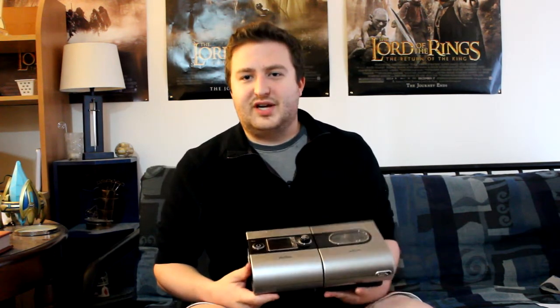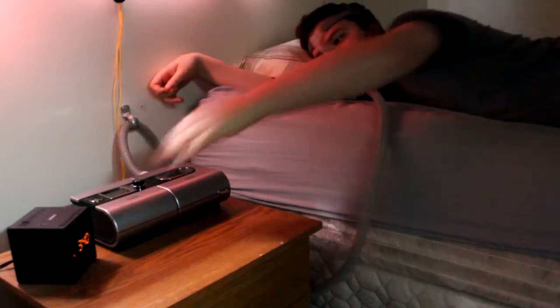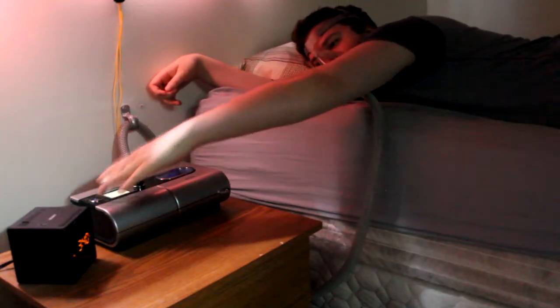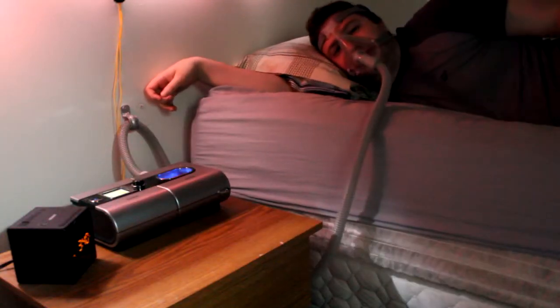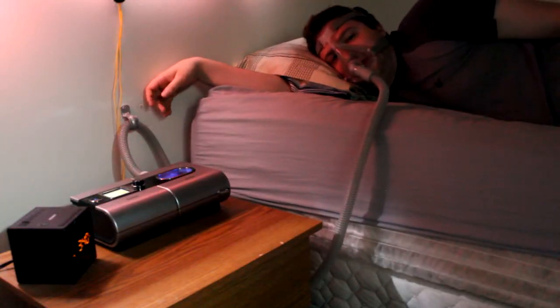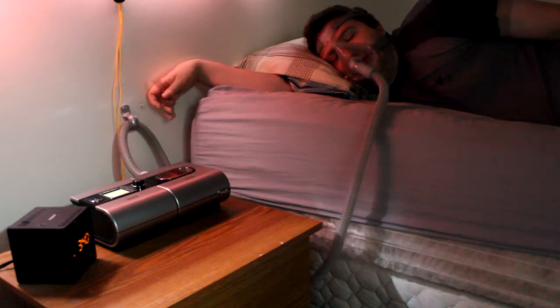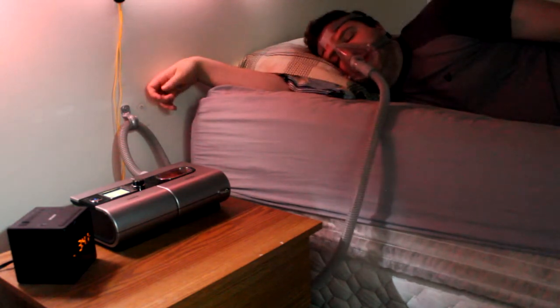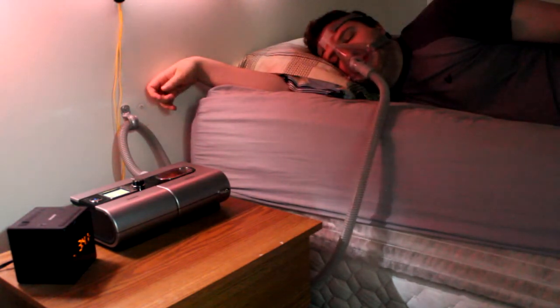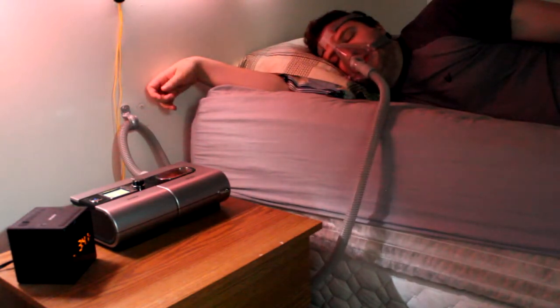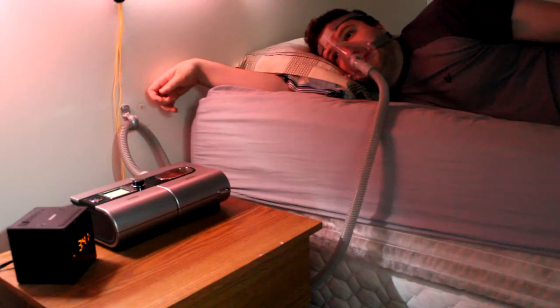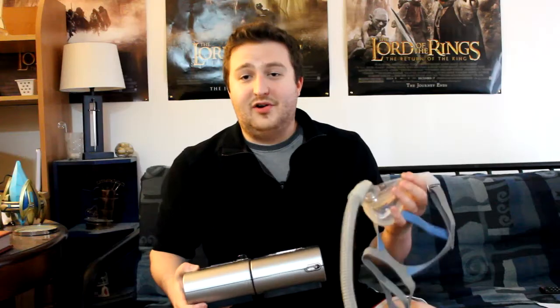Sometimes, however, in dry conditions, the water reservoir can run dry. Unfortunately, even though there's no water, the heater will continue to heat up. The air being pushed through the mask then rises in temperature. Eventually, you wake up completely dried out with hot air blowing into your face. It's very uncomfortable and a bad thing to wake up to.